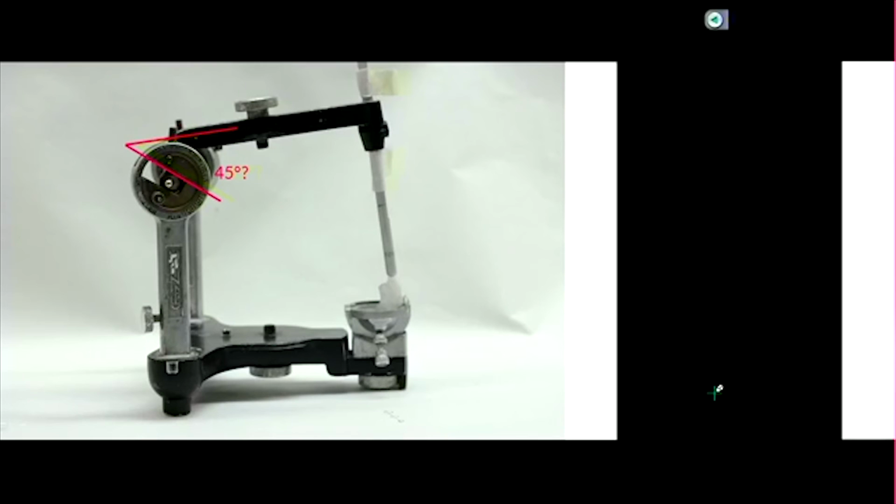Well, the condylar inclination just stays there. It doesn't move with the upper member of the articulator. So as you, where's this guy at? So it's getting passed around. Go ahead. And as you open and close, notice the difference between the two.